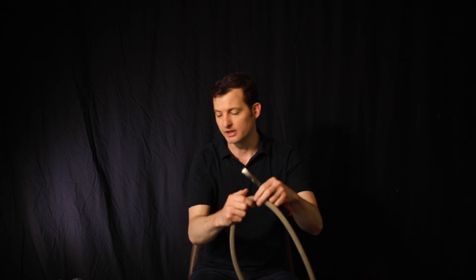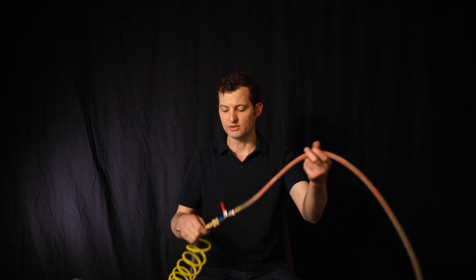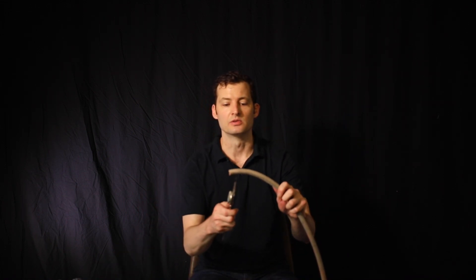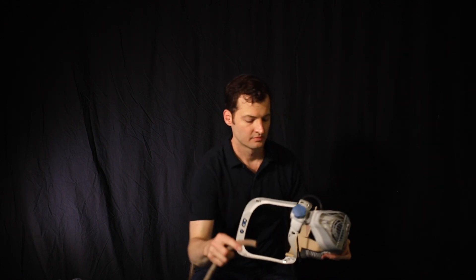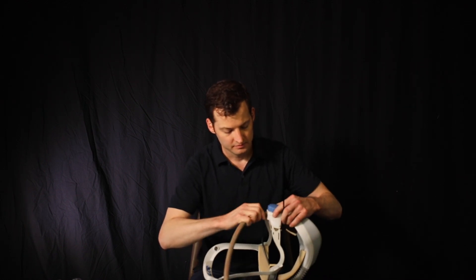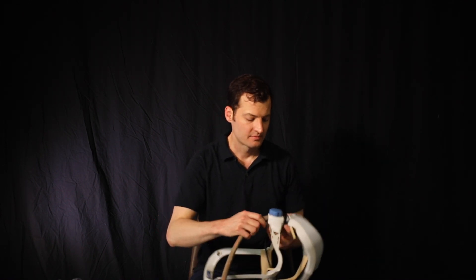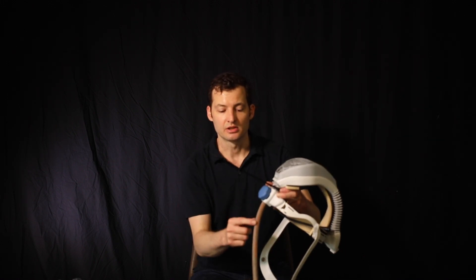We're going to give a little bit of slack and cut the line. So here's what we have so far: we have our inline intake air, our valve secured to our waist, and then our hose that's going to go into our Stryker helmet. Luckily this hose is about the same size as that opening — both are 5/8 inch. We're going to feed this hose through that opening very carefully. Ideally a smaller size hose would be better. Basically you're going to feed that hose up through the opening to the soft channel port and then tighten a zip tie to hold that tube in place.